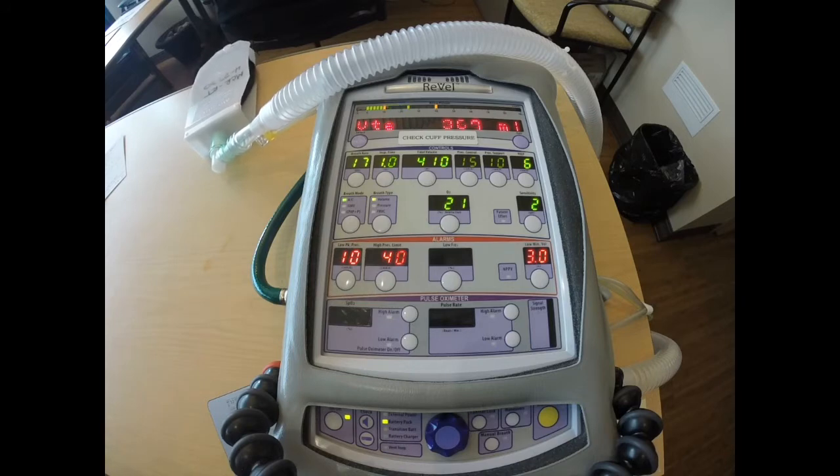Pressure-regulated volume control can be quite uncomfortable for alert patients, especially if a low tidal volume is used, and it may cause a worsening auto-PEEP when pressure-regulated volume control is used.